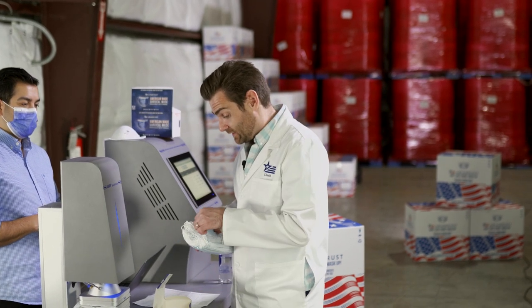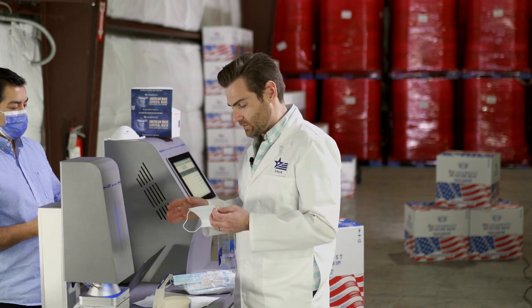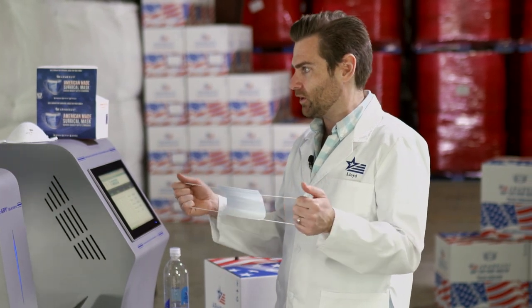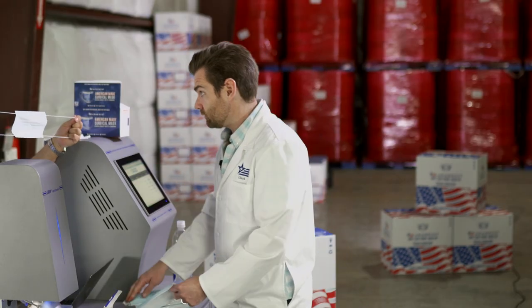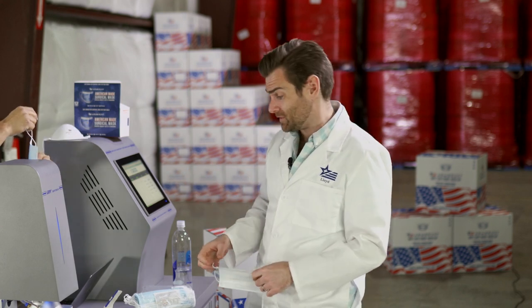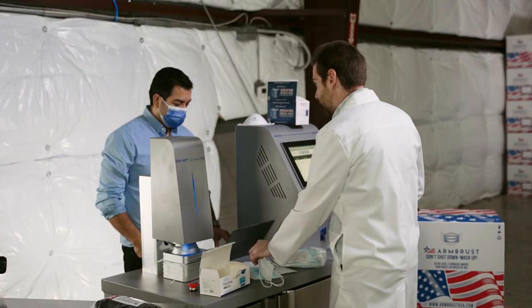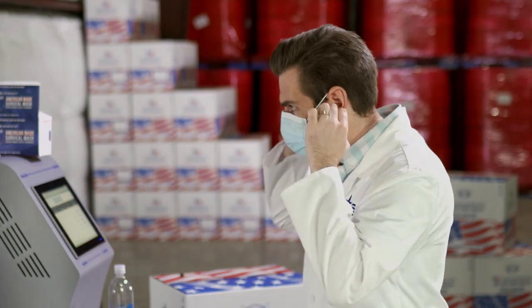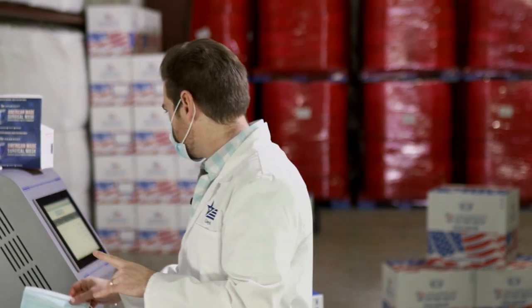It's got really thin ear loops, which is interesting — like they saved money on the ear loops. Oh, but it's strong, that's surprising. One broke though — here, try this one. That one's good. So one broke, which is to be expected. Look, if you're paying under $10 for 50 masks, part of what you're paying for is some of those ear loops breaking. I'm going to put this on my face — it says very loose. I don't like how loose the ear loops are.